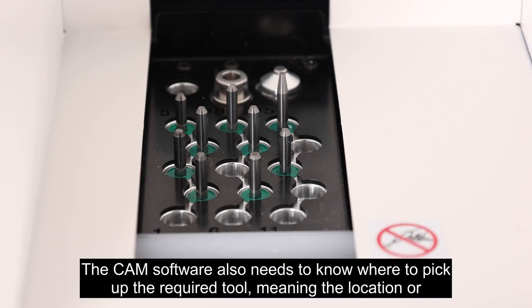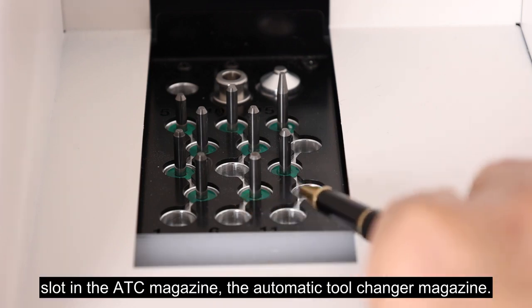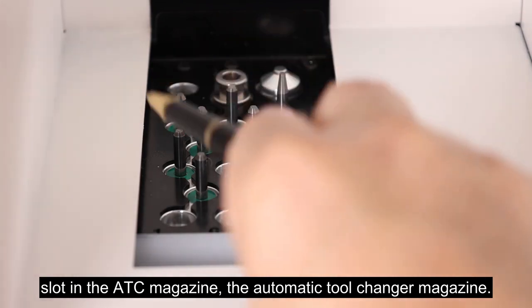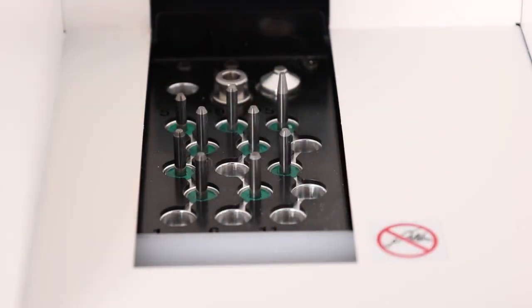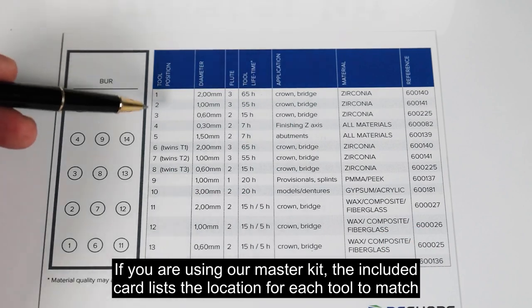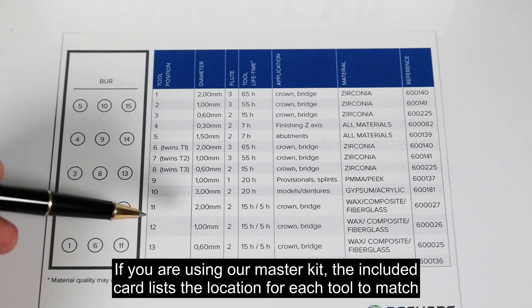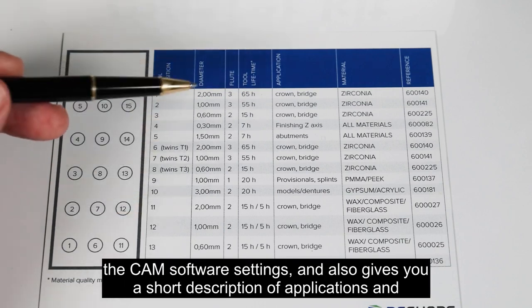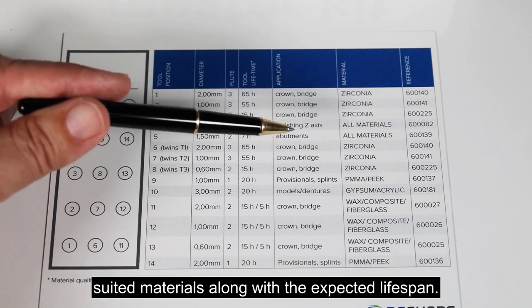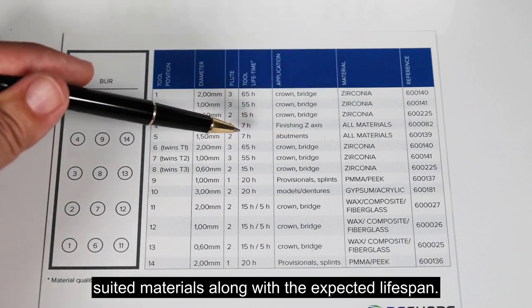The CAM software also needs to know where to pick up the required tool, meaning the location or slot in the ATC magazine, the Automatic Tool Changer magazine. If you are using our master kit, the included card lists the location for each tool to match the CAM software settings, and also gives you a short description of applications and suited materials, along with the expected lifespan.